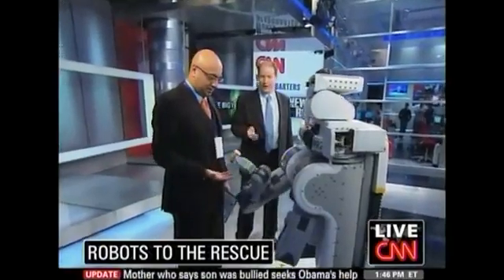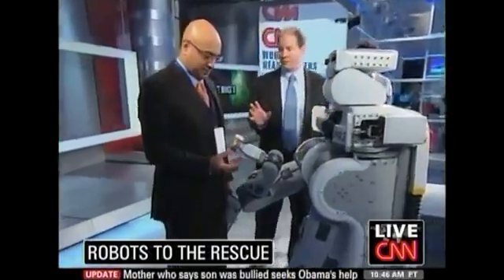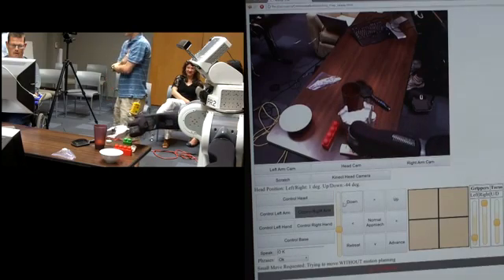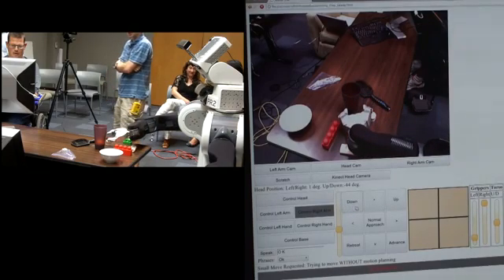Henry saw a PR2 on CNN and wondered whether it could help him. We have been working with him ever since to develop tools and interfaces that allow him to control the PR2 and to use it for his daily activities.